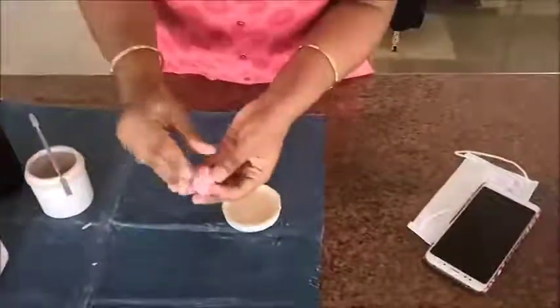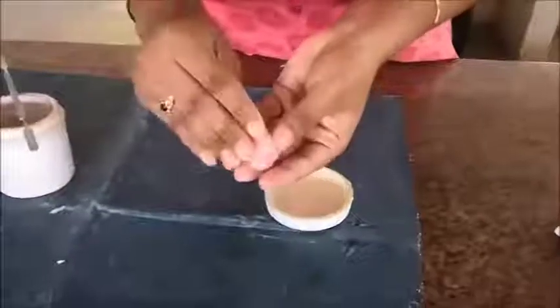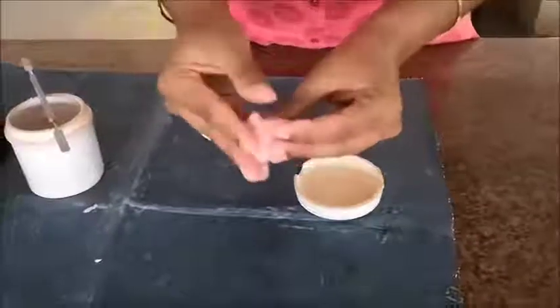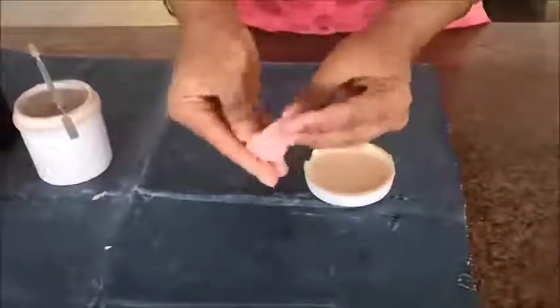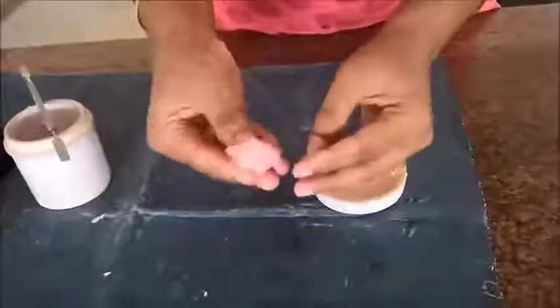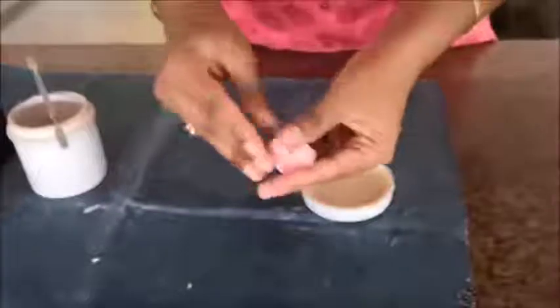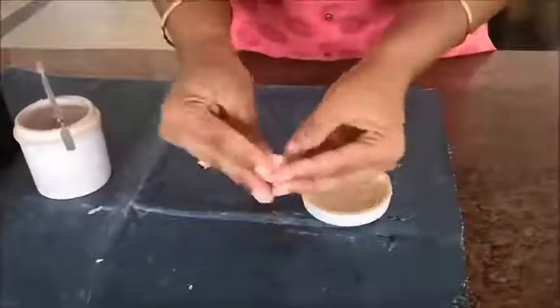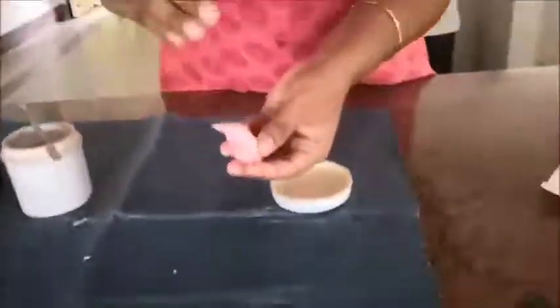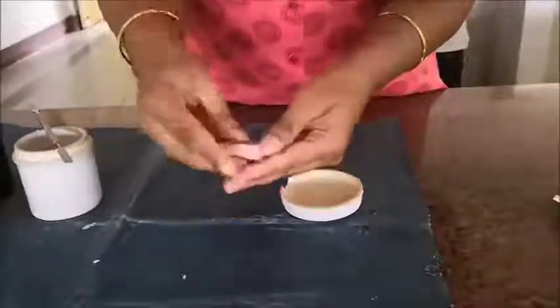Now we can see the sticky or stringy stage — this is the second stage of polymerization. On manipulation, the mass becomes sticky as it forms strings. We can see the strings forming and it is sticking to the hand, hence the name sticky or stringy stage. You can see it's sticking and nice strings are formed.